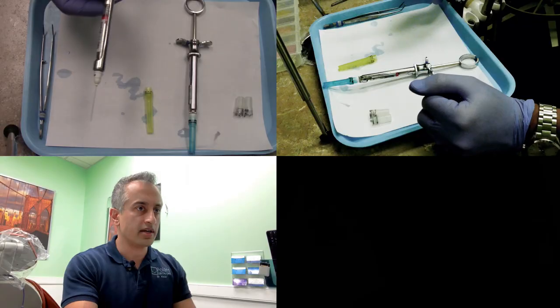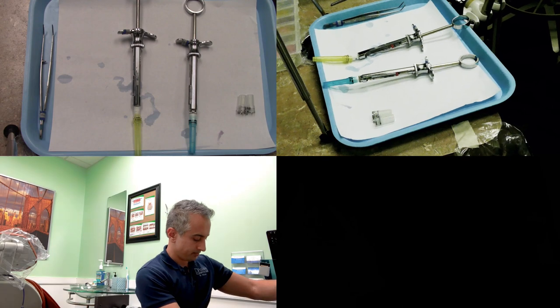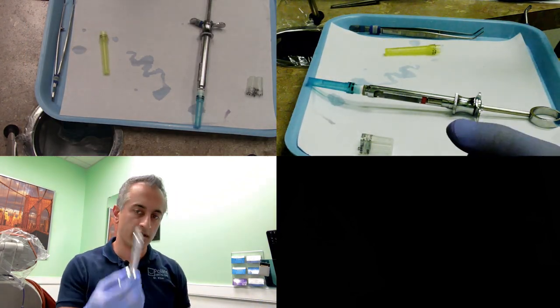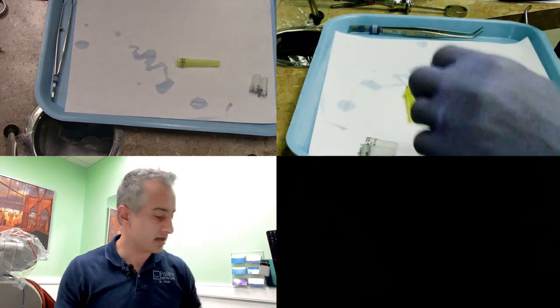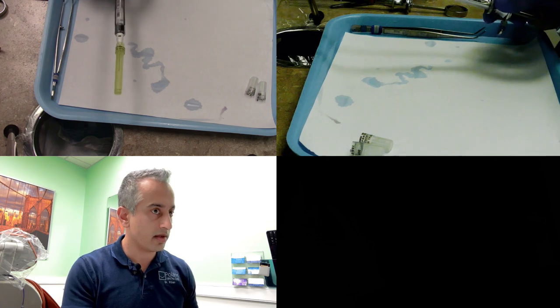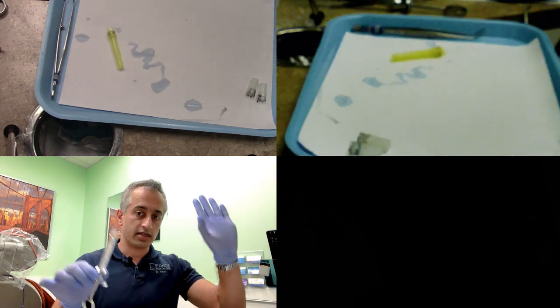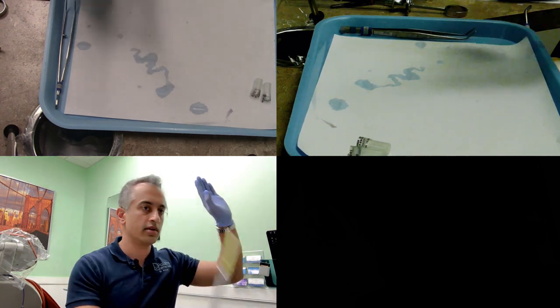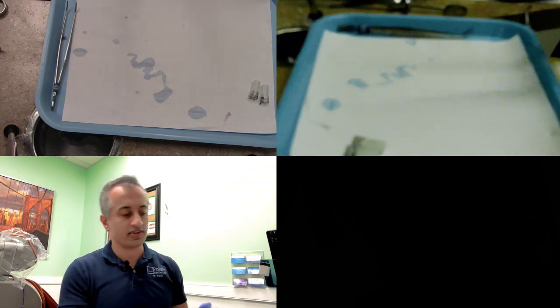Here's how you cap it. We want to scoop the cap onto the needle and then use our hands to tighten it. Here we have an exposed needle and our cap. I'm not going to hold this in place—I'm going to bring the needle and insert it into that cap, then lift it up. It's actually a one-hand technique. I'm going to keep this hand out of the way, scoop it into position, and then finish capping. That is the scoop and cap technique.